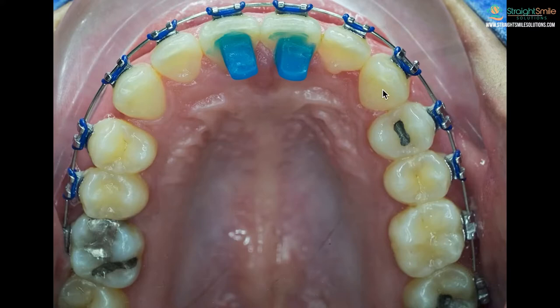It's important to understand the side effects of bite bumps so you know what's normal and what's not. For top teeth, if you put them on the back of the front teeth, you're not going to be able to bite fully down anymore — your back teeth won't touch for a period of time. This can make it very tricky to eat. It's a double-edged sword: great that your bottom braces are on and you're not breaking things, but you can't eat very effectively.